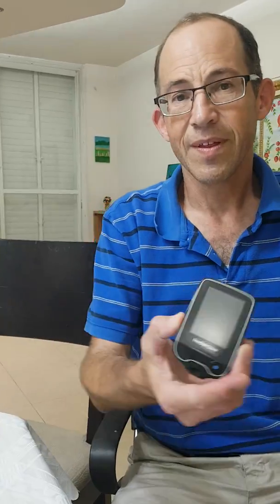About half a year ago, I started using the Freestyle Libre sensor for continuous blood glucose monitoring. Before, I was using the Freestyle blood testing sensor, doing blood tests from my finger using a device like this. And with that, I got to a hemoglobin A1c of around 6.4 to 6.7. I was then recommended to use the Freestyle Libre sensor for continuous monitoring to do further tests and see trends over time.